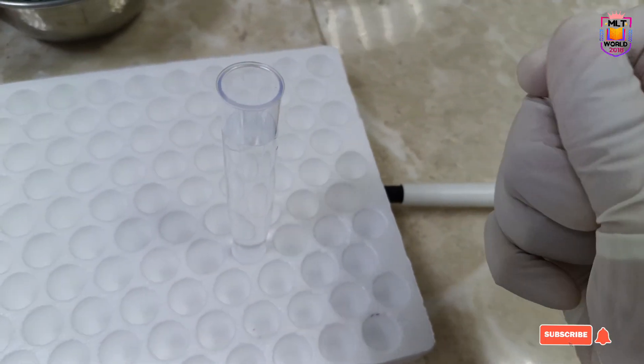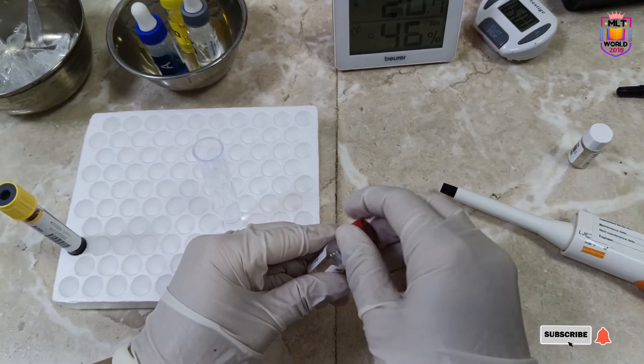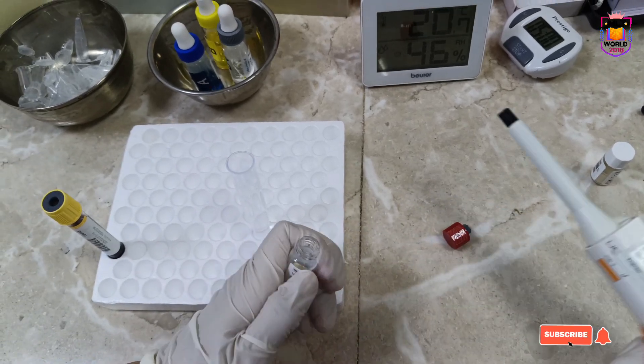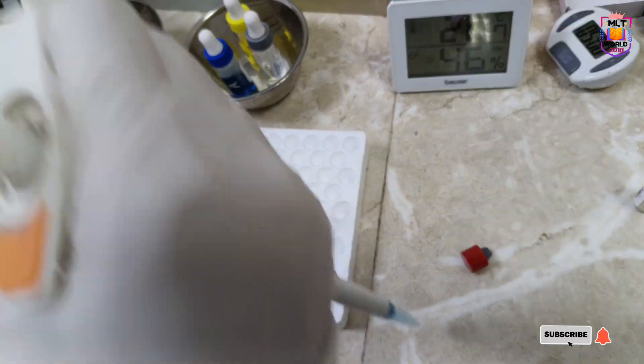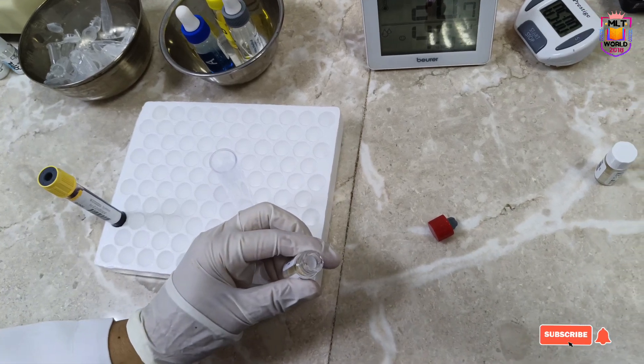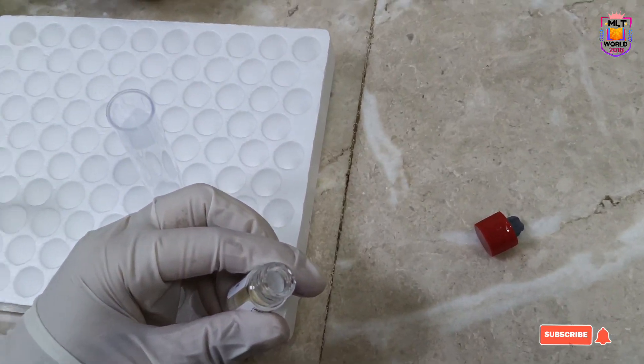First, this is the standard and I will show you how much water we have to add. I think 1 ml of water we have to add. Just wait, I'm trying to show you.